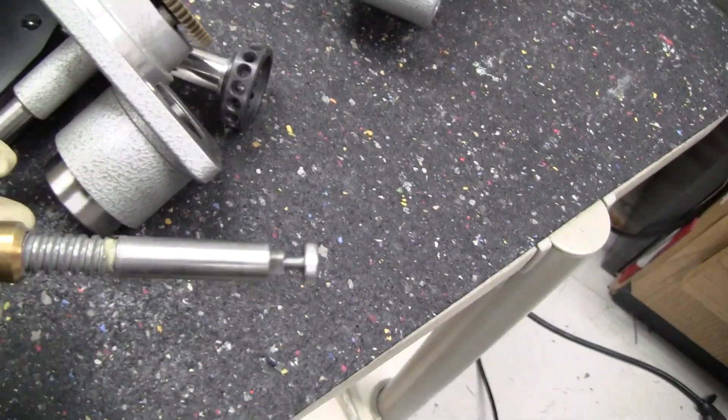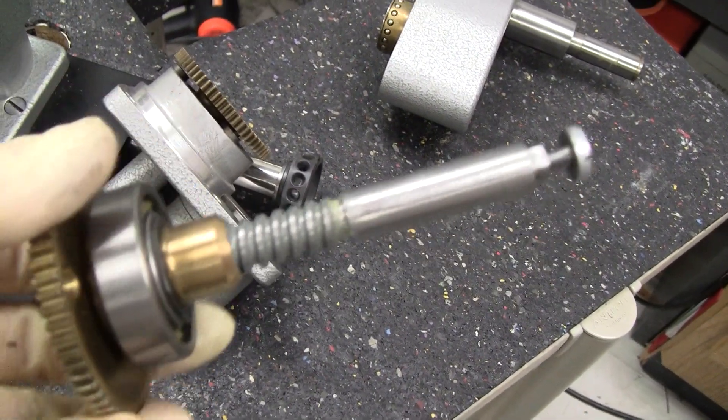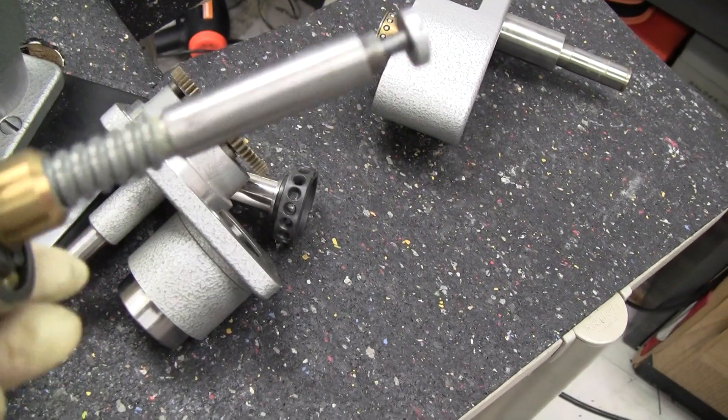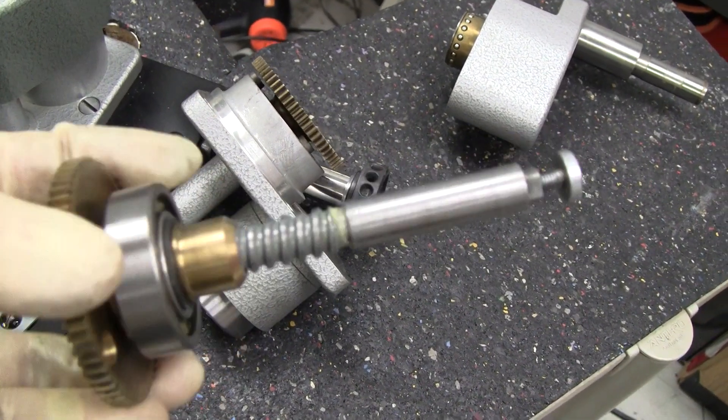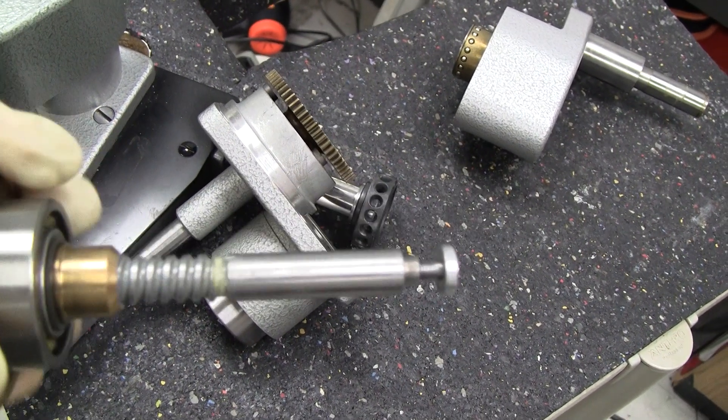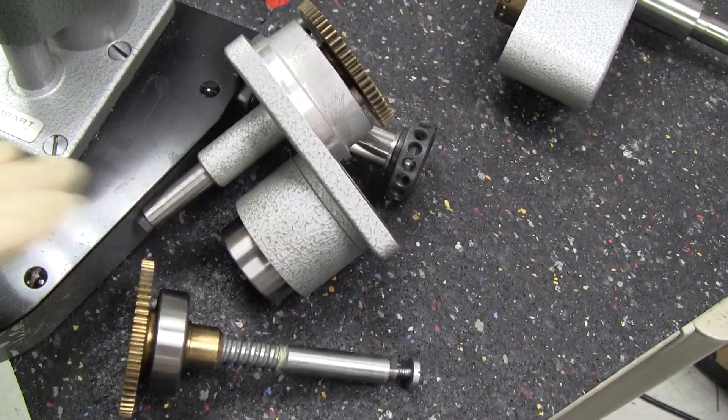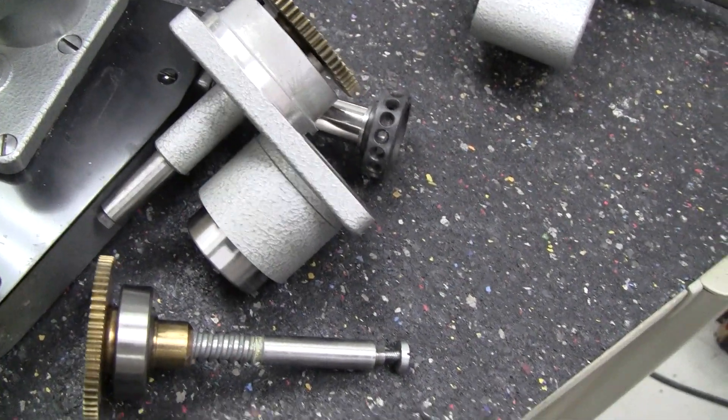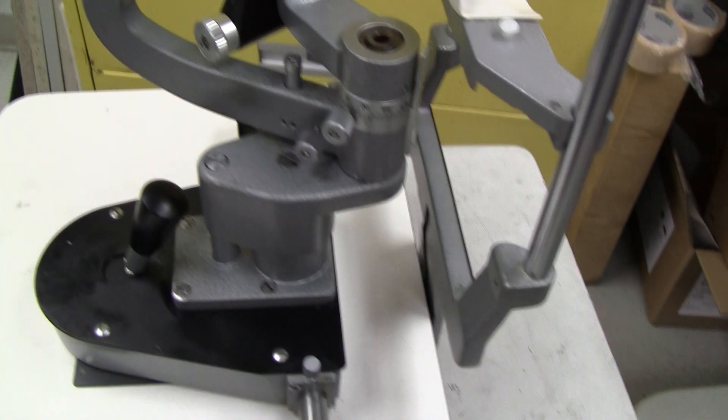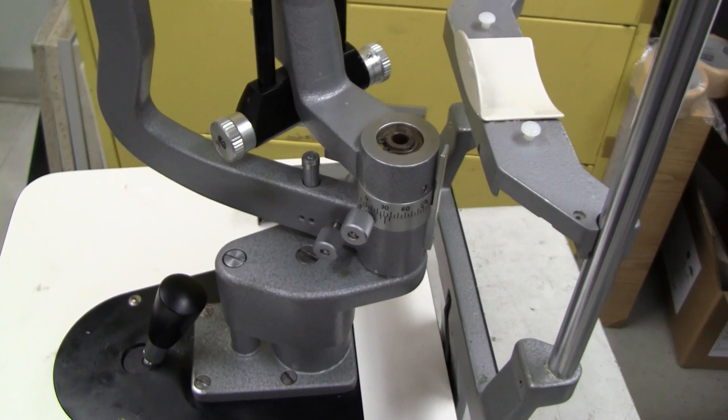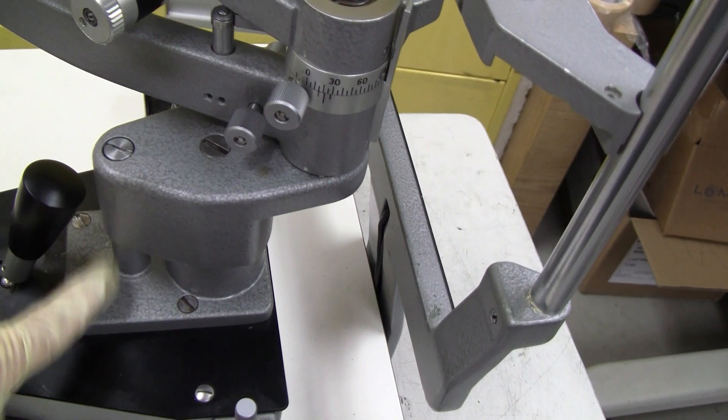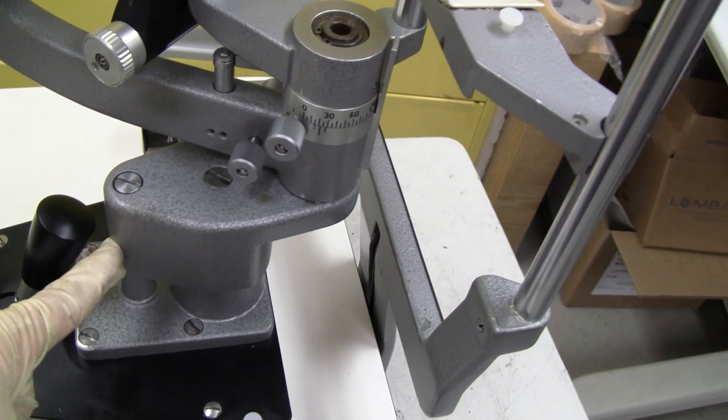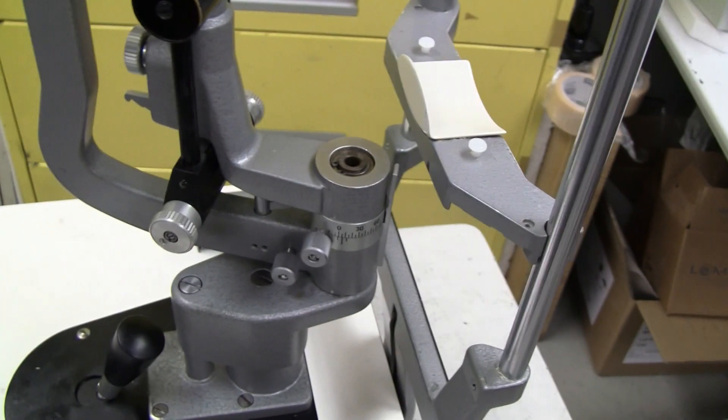It could be that the grease has broken down and it doesn't have the same viscosity. It doesn't have the same tension, so it's not putting the correct amount of drag to keep it from moving too easily. That's my guess. But this one had the issue, and with the new spring and re-greased spindle assembly, it doesn't have that problem anymore. So I hope this helps out for you too.